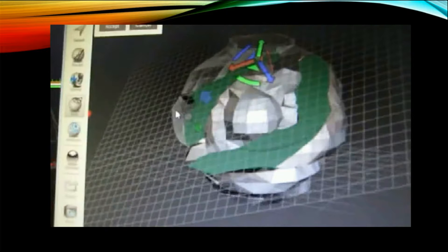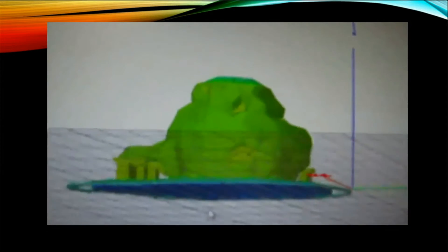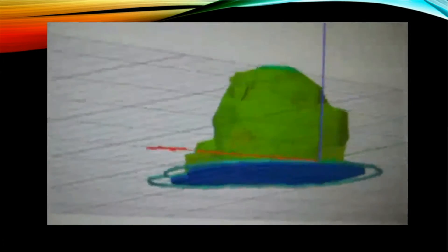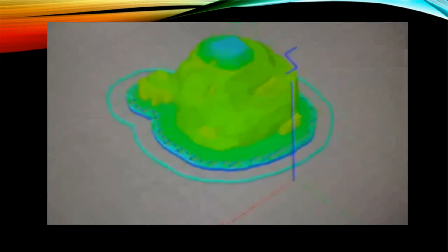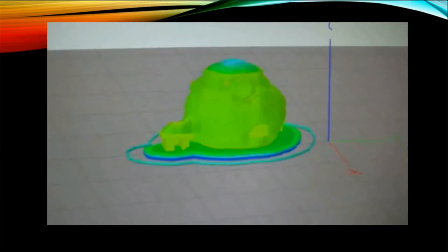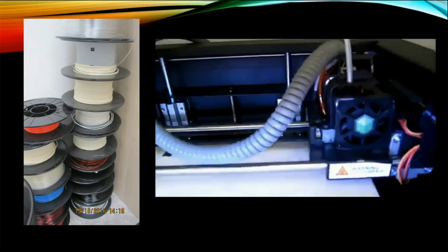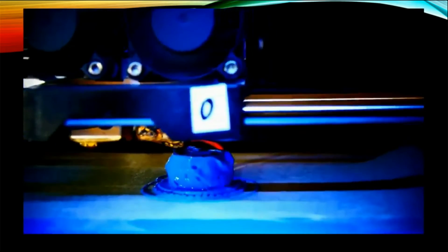Software for data segmentation, 3D Slicer freeware version, was used to generate the virtual 3D model of the targeted eye. The virtual 3D model was sliced, additional support was calculated, and the 3D model was prepared for printing using 3D printing slicing software Simplify3D. Printing technology fused deposition modeling was used. Thickness of one layer in vertical line was 100 µm, which provides an ideal proportion between accuracy and velocity of the 3D printing process.